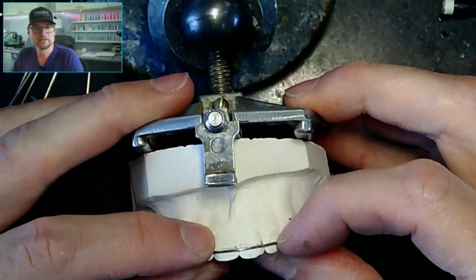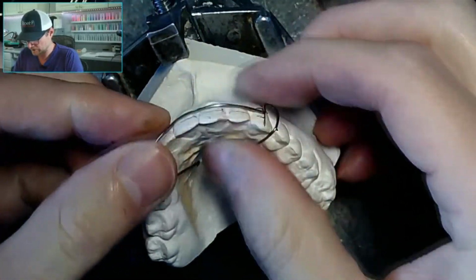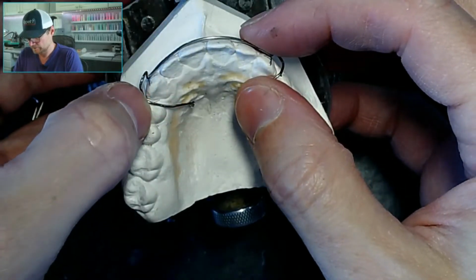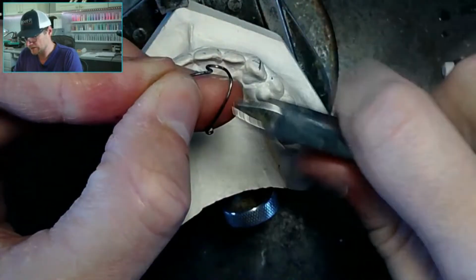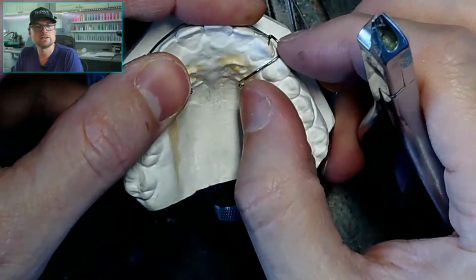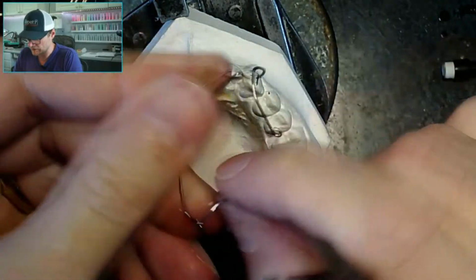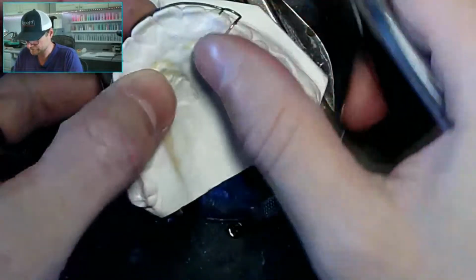So I'm still high. Come on, Kate. Do a little bend. A little cheat bend. There we go. And one of the things is this needs to be passive. So you can't go and make this labial bow super tight to make sure it gets where it needs to be. So let's tighten this loop up, both of these loops. There we go.